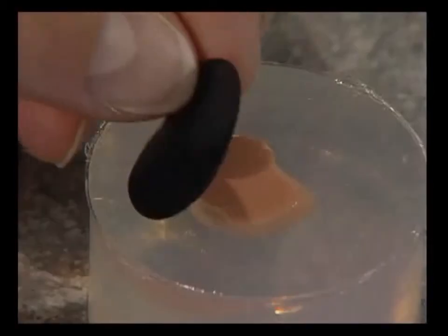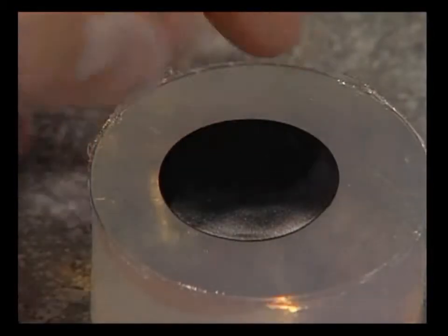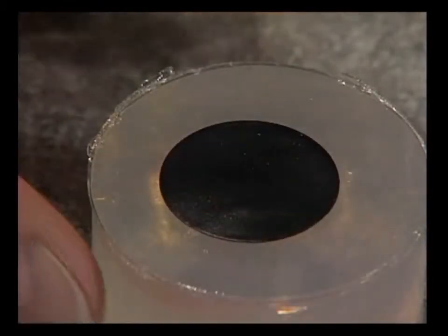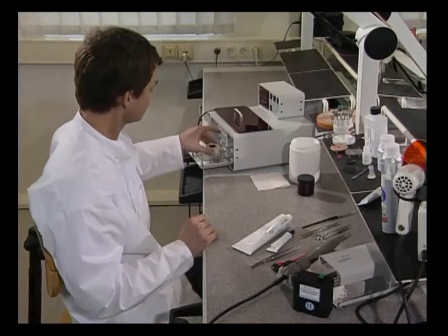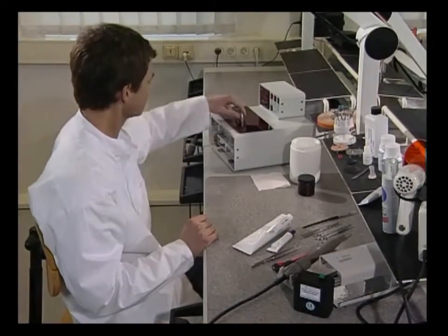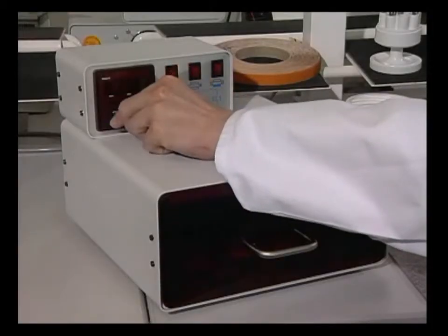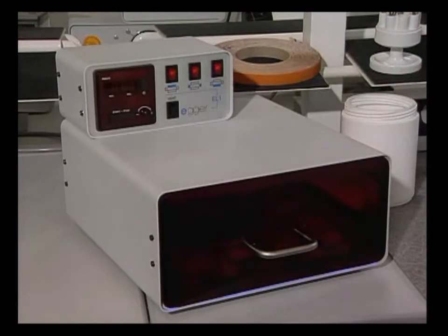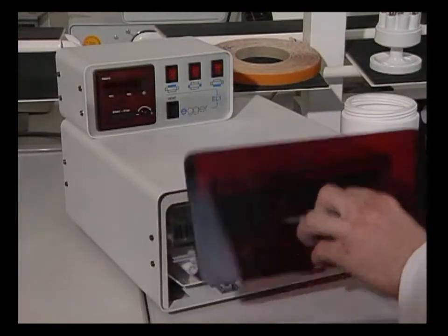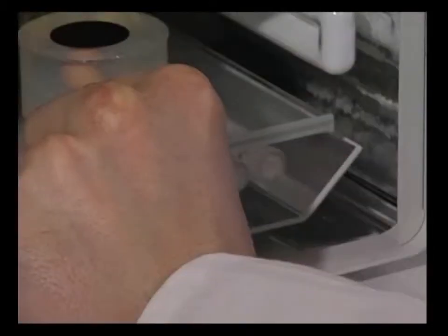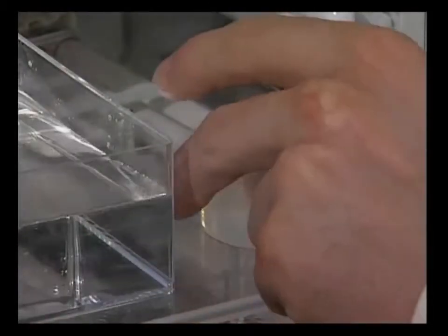Then the negative form is carefully covered with black foil. The LP material is pre-polymerized in the light unit. The various times are all listed in the product information enclosed with the material. The time must be increased or decreased depending on the size of the shell and the transparency of the negative form.